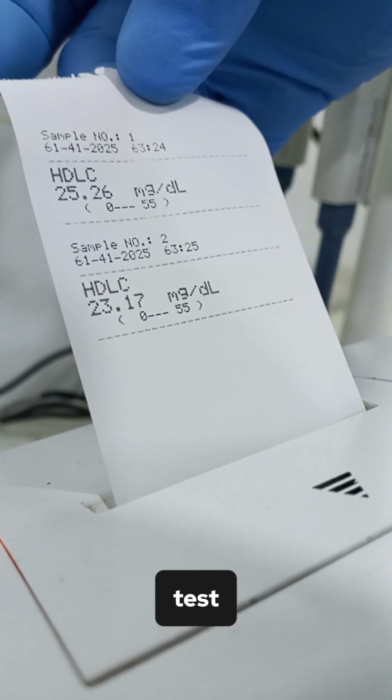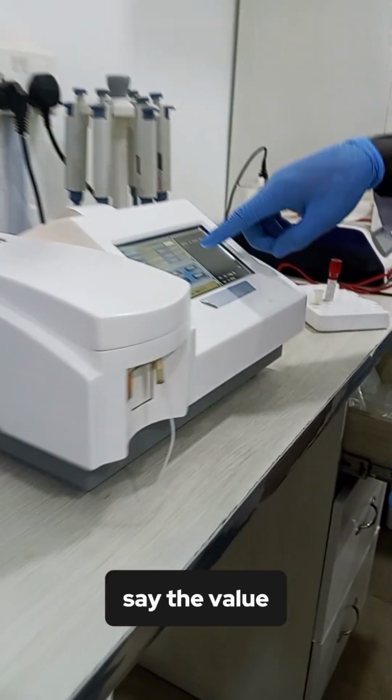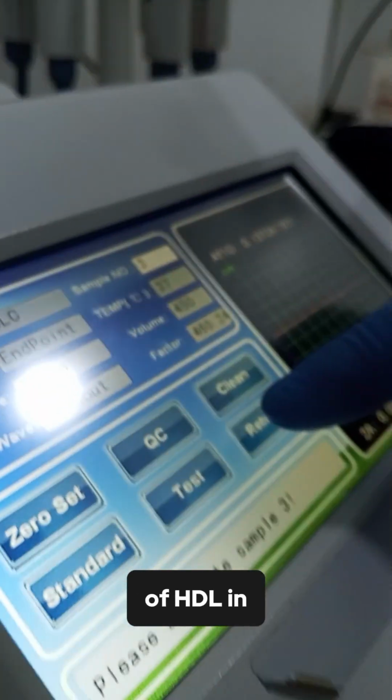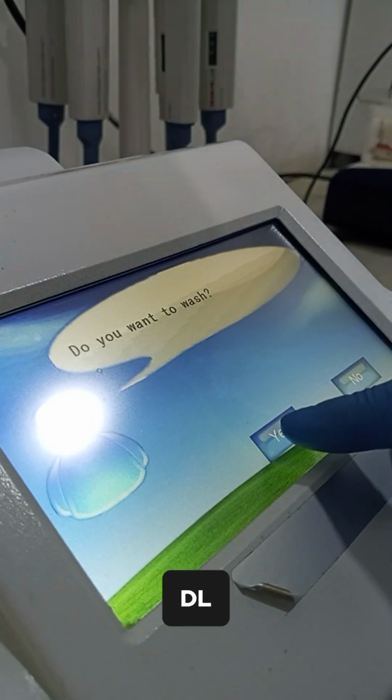You can see this is our test. Our test is 23.17 milligram per dL. That is to say the value of HDL in that sample is 23 milligram per dL.